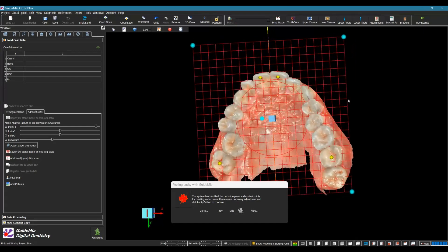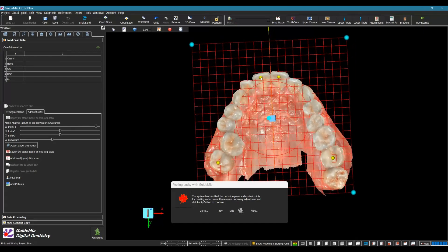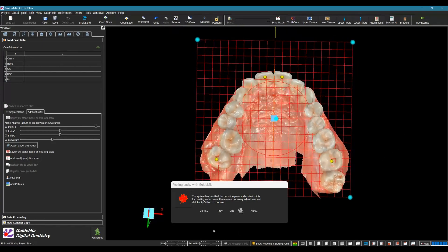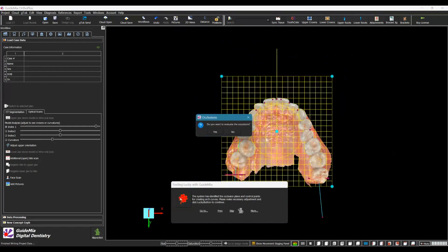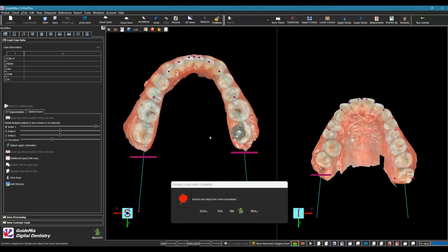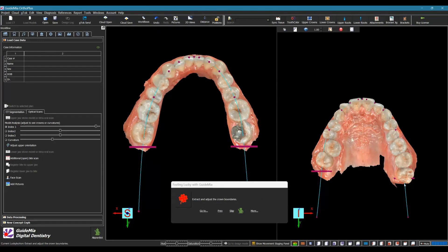There are also two handles on the molar or post-molar area — they should be roughly on the center of the tooth occlusal area. If not, click and drag the handles to the correct position. When adjusting the handles, the occlusal plane will change. The center line of the plane determines the final centerline of the alignment, which may not necessarily be the current centerline of the upper jaw. Then extract and adjust the crown boundaries. There are two horizontal bars on each dental arch curve used to define the range of tooth segmentation.